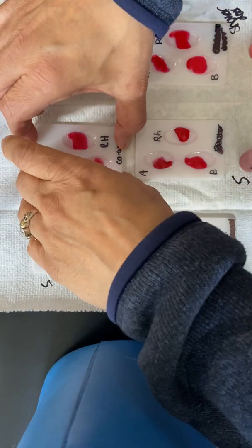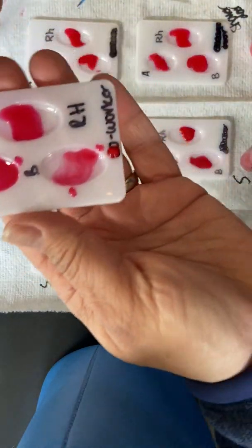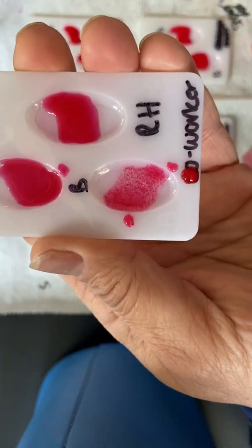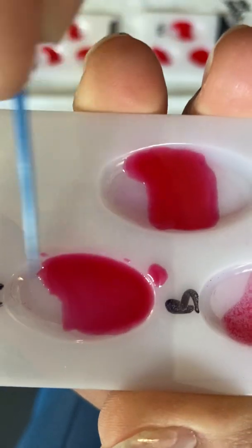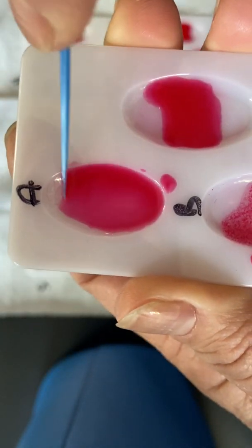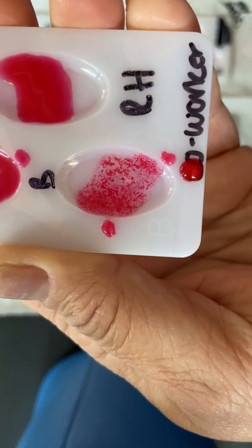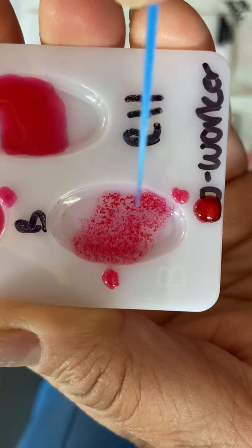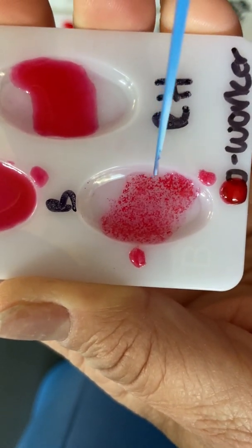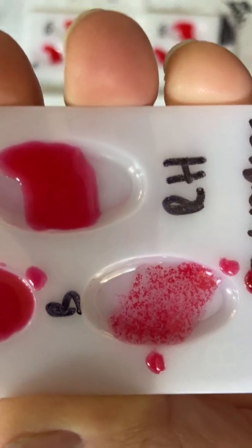Now, we have Danielle. Let's check and see, right? Let's check and see. So let's see, we got this one, A, still very watery, still very swirly, not much going on. But check out the B, even though I made a little spill here. See the B? See all these little chunks in here? So this is reacting. This means that Danielle's blood type definitely has a B involved.